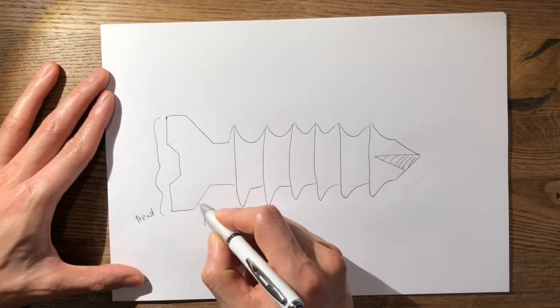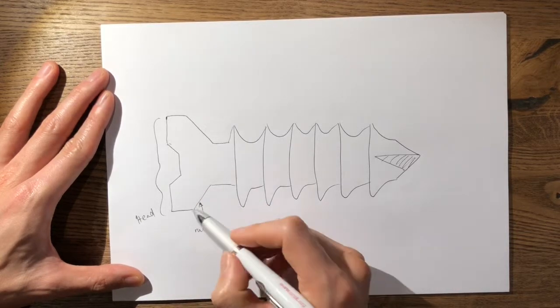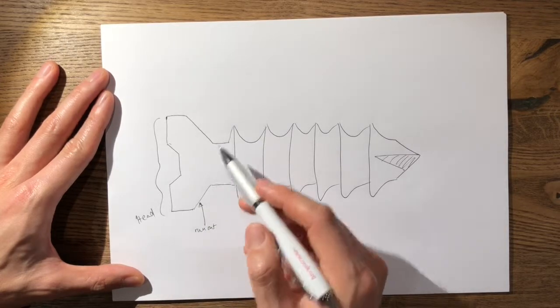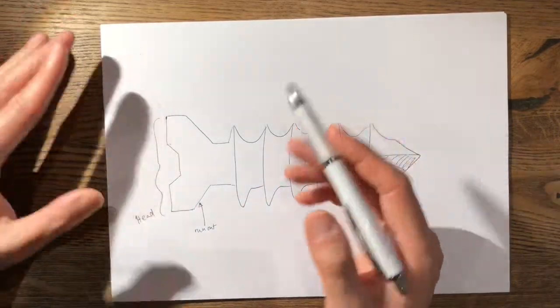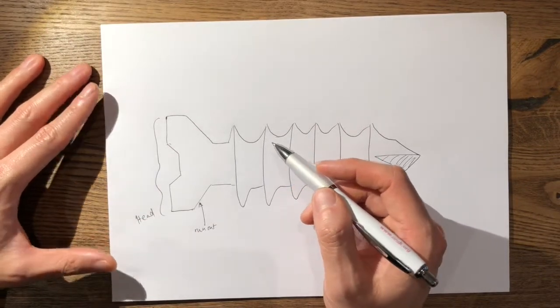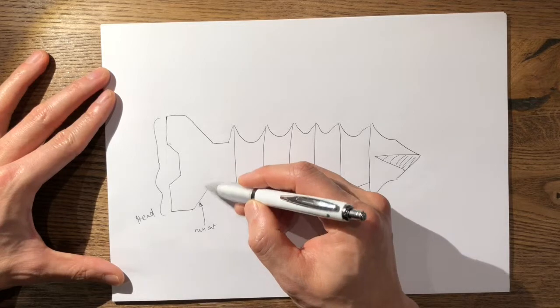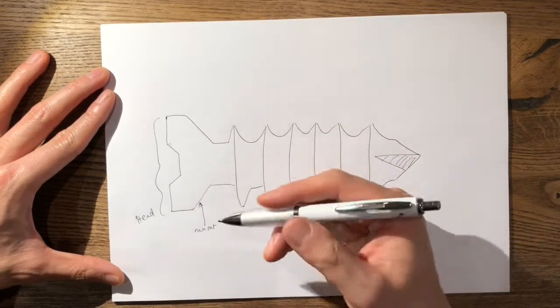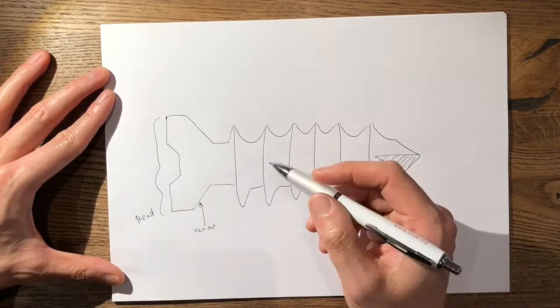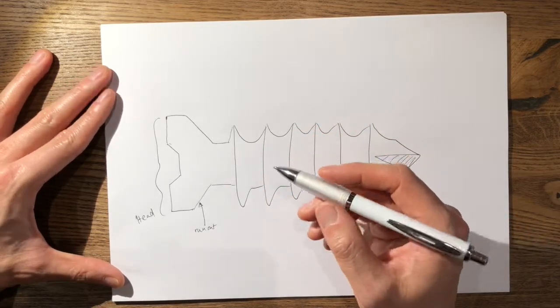This is the run-out of the screw. The run-out can either be conical, which allows it to countersink and engage into the cortex of the bone or the plate, or it can be threaded where it's a locking screw and it can lock into the threads of the plate, creating an angular stable device.